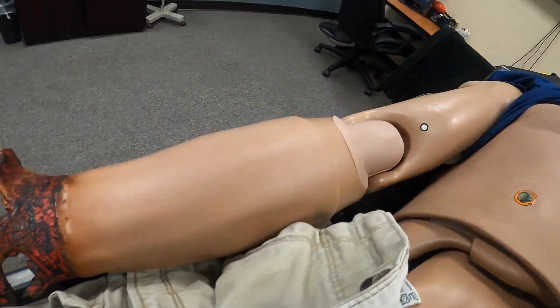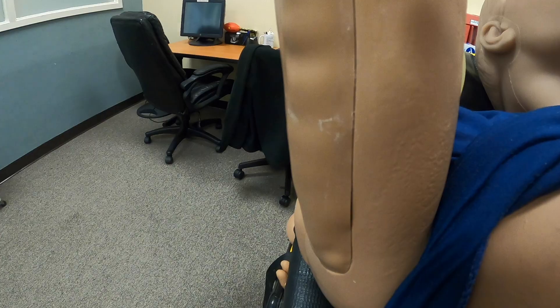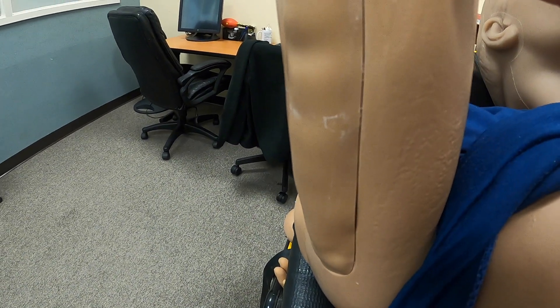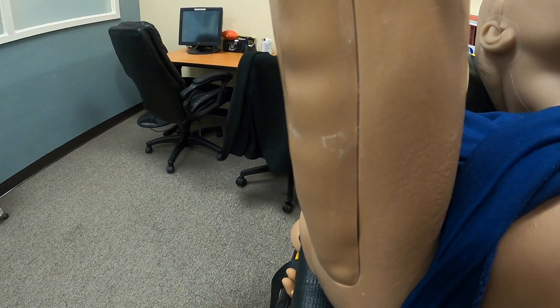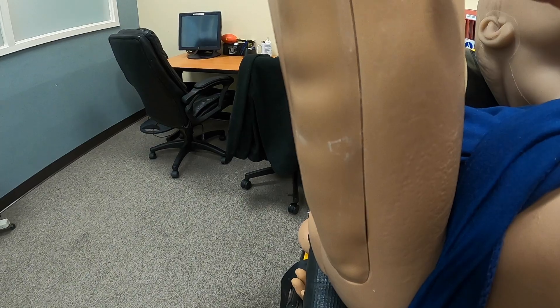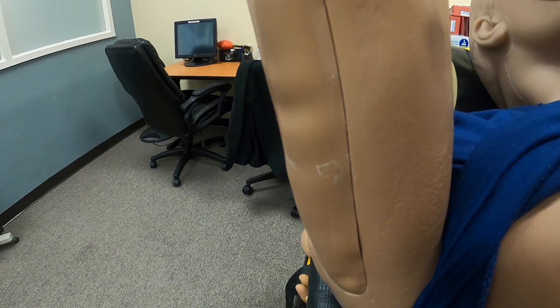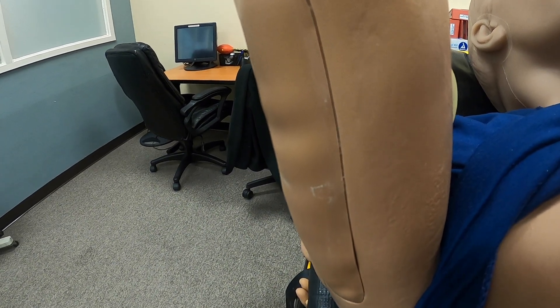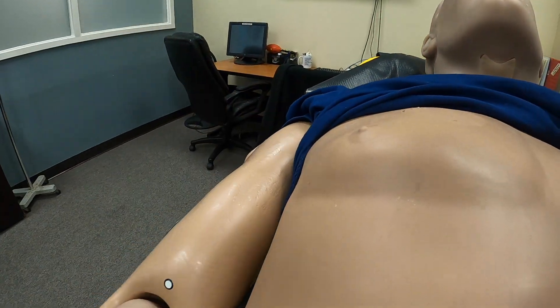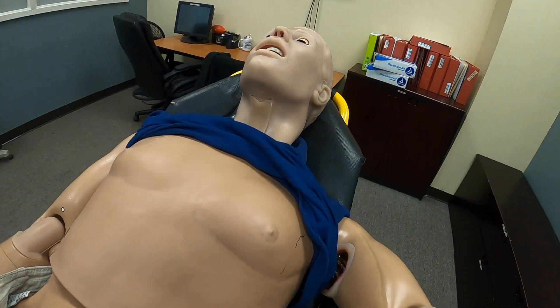On any of the extremities that have an amputated part, there is a pressure sensor. Once the student has put the tourniquet on, the bleeding from the distal arm will not stop until the student has applied the appropriate amount of pressure. We can also change parameters so that if the tourniquet moves during transport, the student has to reevaluate the injury site and add an additional tourniquet or fix the initial one. The mannequin also has an axillary bleed.